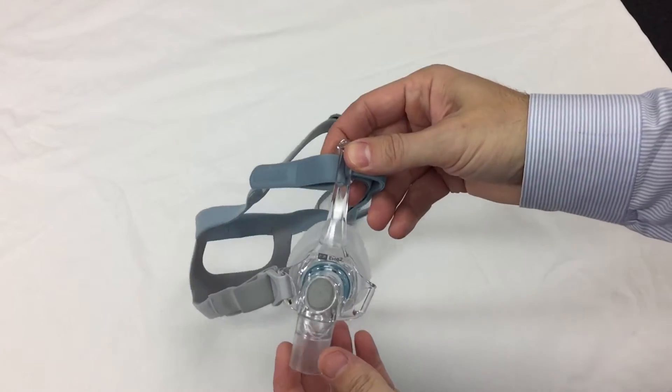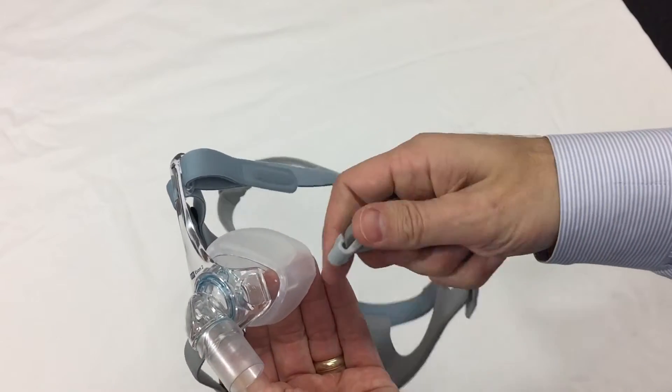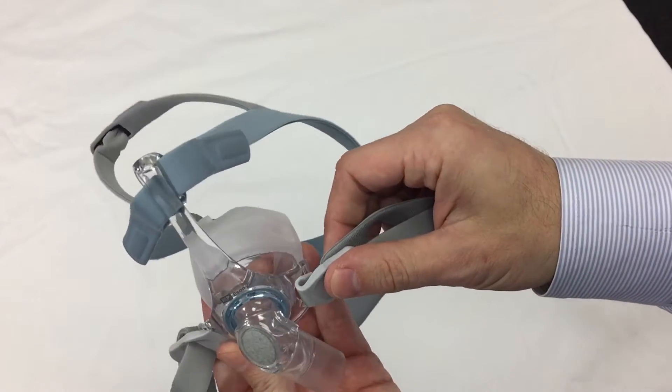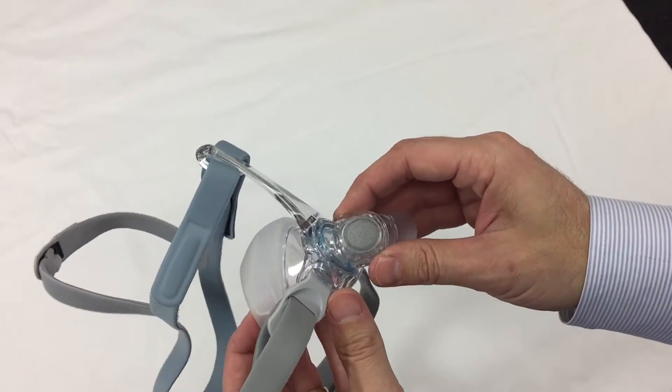As you can see, it's a very small profile that will sit nice and tight on your face. It has these new clips. It's a little bit of an improvement, very easy to get on and off of the mask frame.